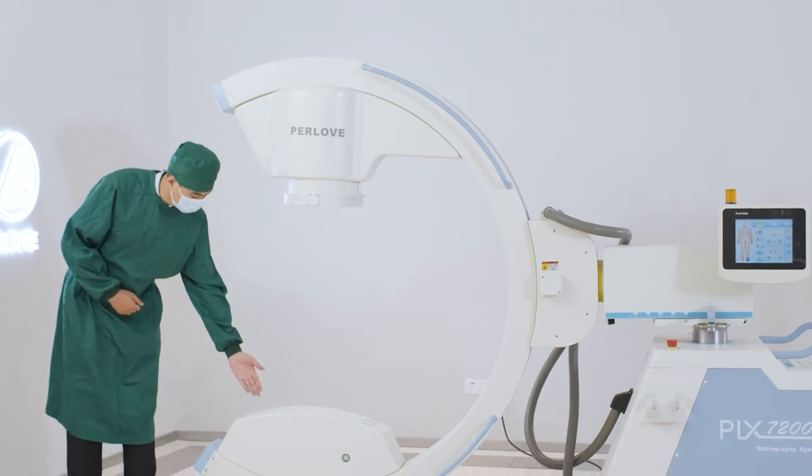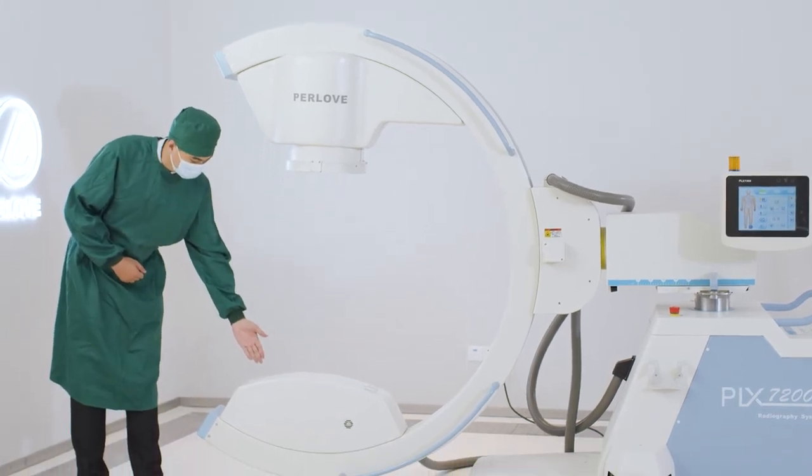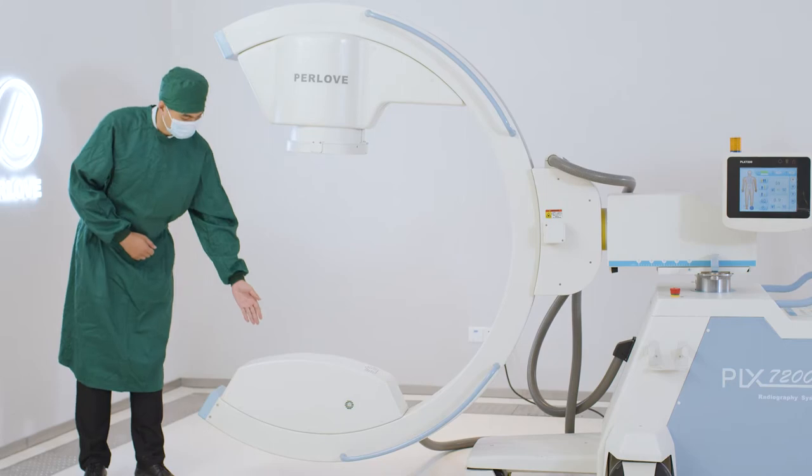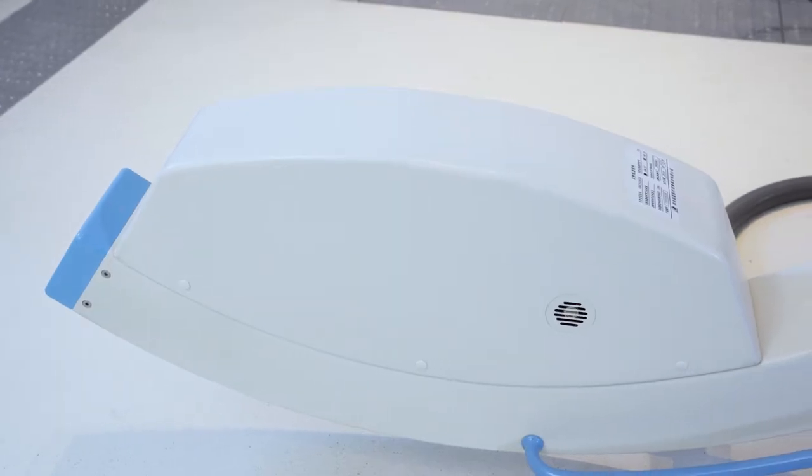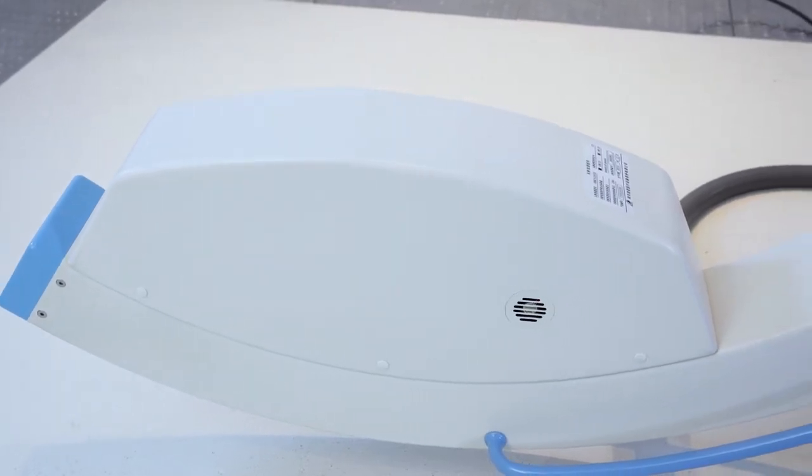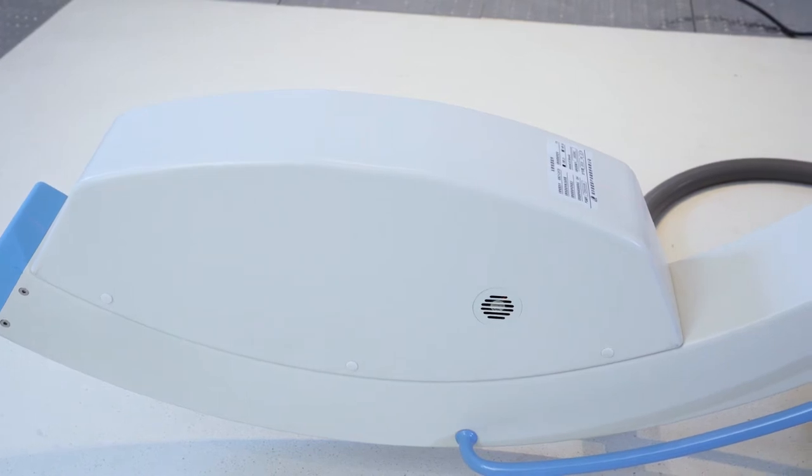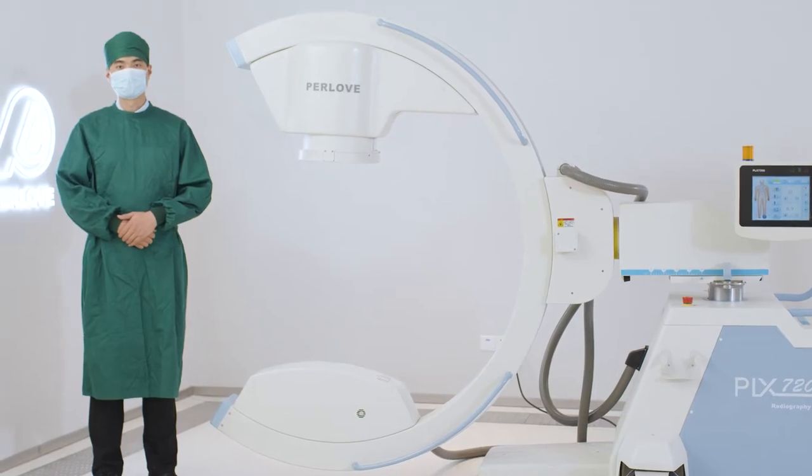High-quality digital image chain. The core components of 3-dimensional digital integrated generator and X-ray tube are independently developed and produced, providing high-quality X-ray sources and higher resolution and sharp images.